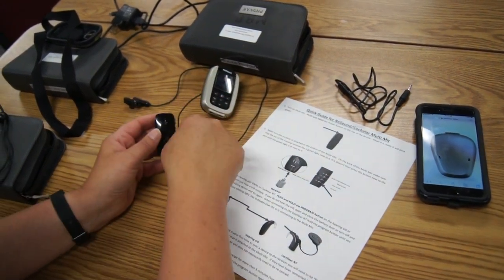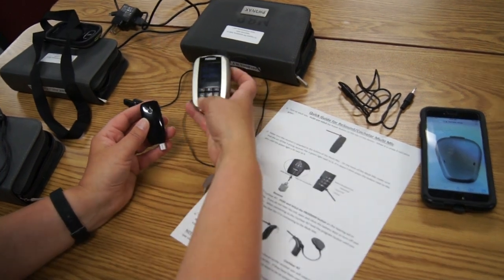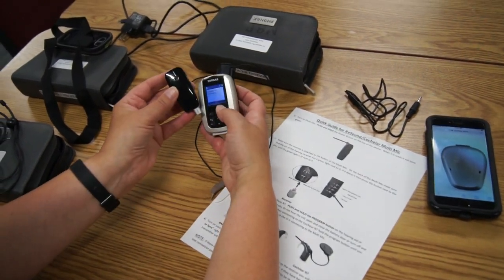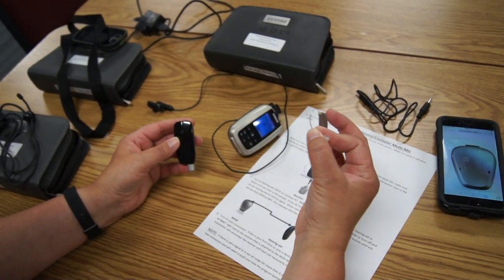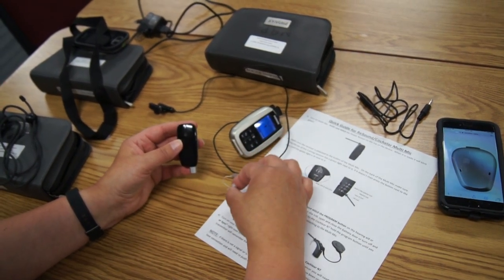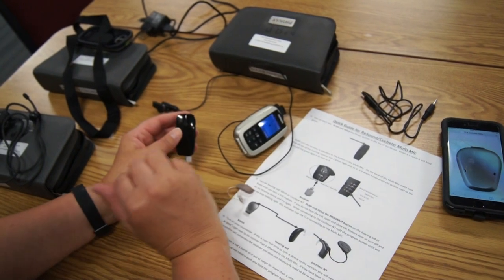You shouldn't need to reconnect, but even if you have to, to be sure, you can hit that connect button as long as you're right next to it. But the main thing is that you tell these devices to go back to that program if you've been away from all these devices for more than five minutes.